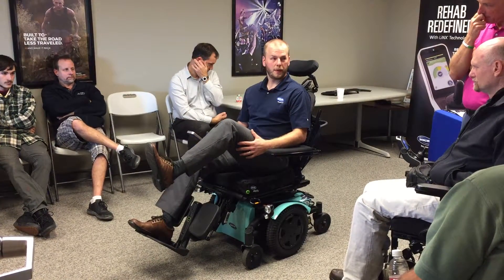I would have people call me and say, 'My feet are up and this isn't right.' I'd say, 'Well, your seat depth is probably wrong — we'll come out and take a look.' Their seat depth was fine, and I'd say, 'You have to continue to elevate.' Then they'd continue to elevate, and once it stopped elevating, it would extend all the way.